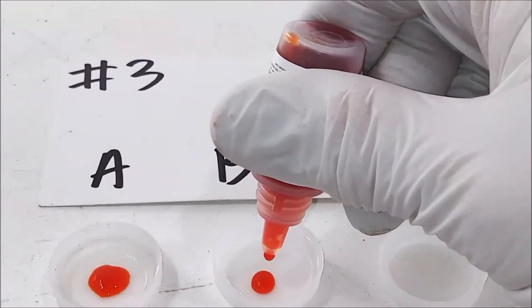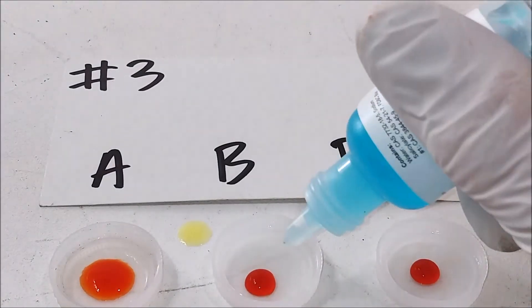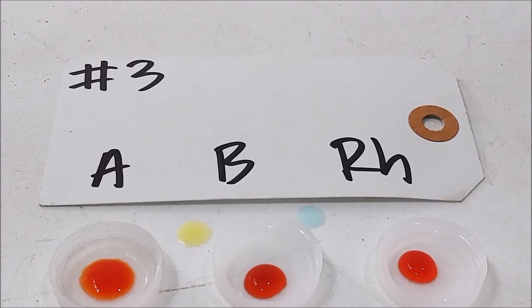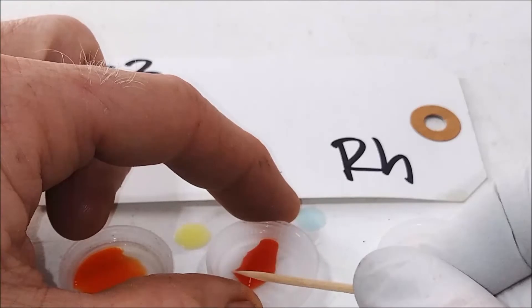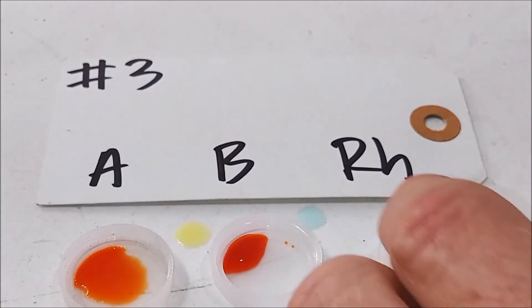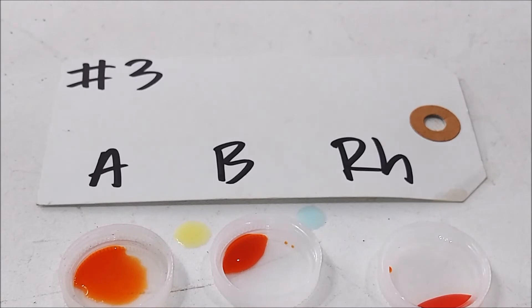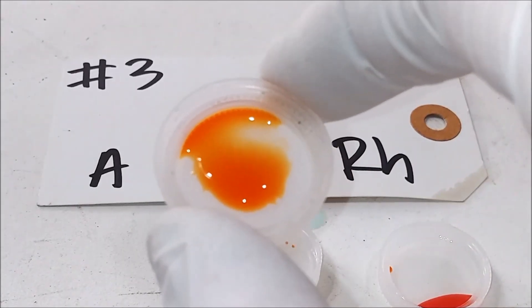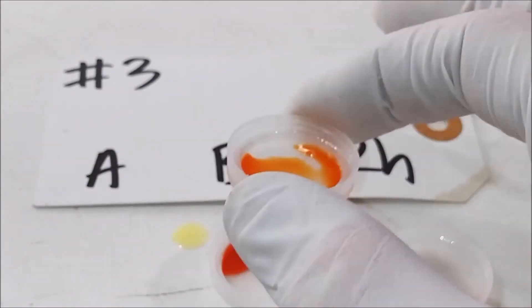By now you should be thoroughly familiar with the steps in this protocol. If not, go back in the video to the explanation portion. In the interest of time, with patients four through eight, I'm going to mix the samples and wait five minutes off camera, and cut back in when we're ready for interpretation. You should also be familiar with how to read whether a sample is agglutinated or not — so I'm not going to be telling you the answers from here on out. It's going to be your job to figure it out and interpret the results correctly.